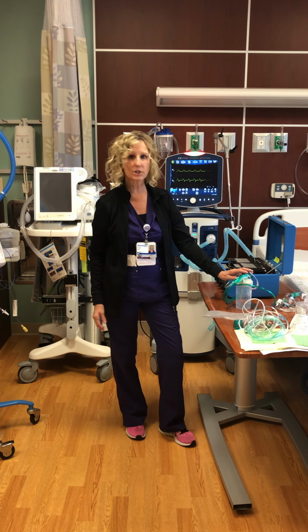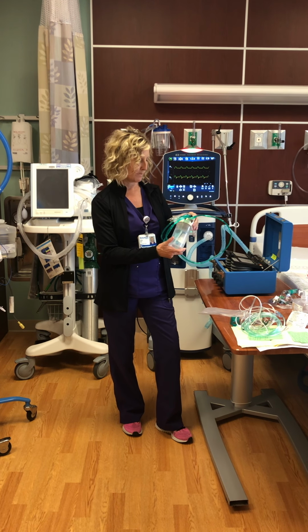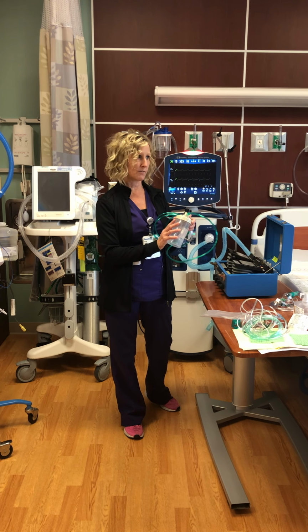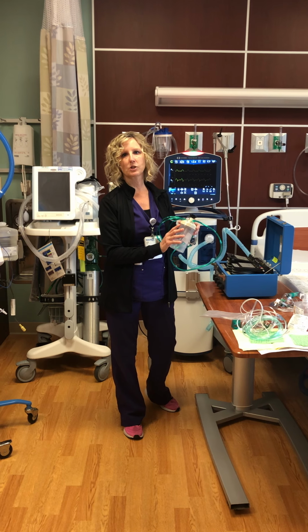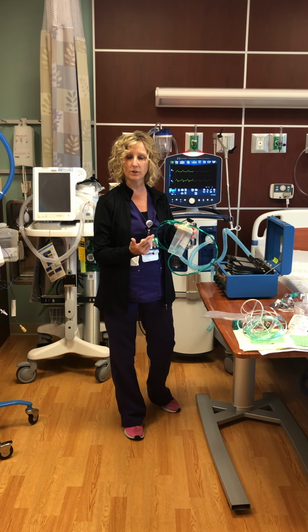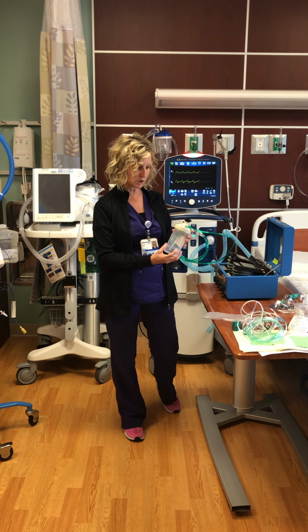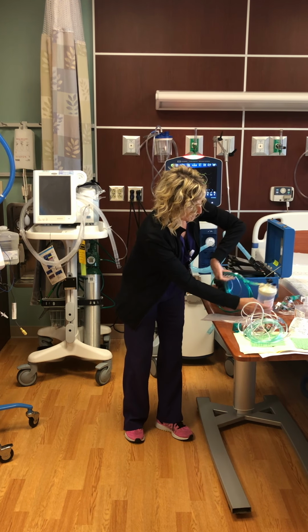We never put any extension tubing on the Salter high flow cannula. A couple of reasons: it messes with the actual delivery of the concentration of oxygen to the patient. And if your patient is requiring higher levels of oxygen, we don't want them getting up, going to the bathroom, doing a lot of exertion. It runs at 6 liters to 15 liters, and it always needs to be humidified.